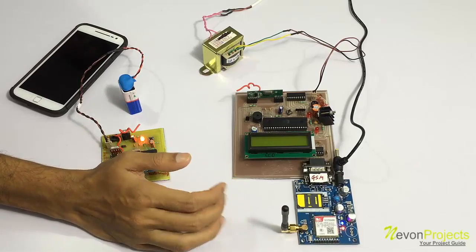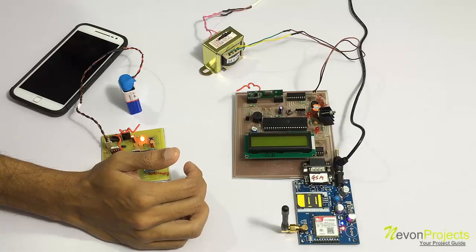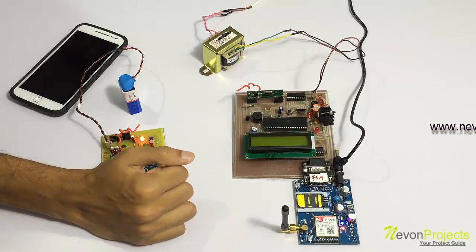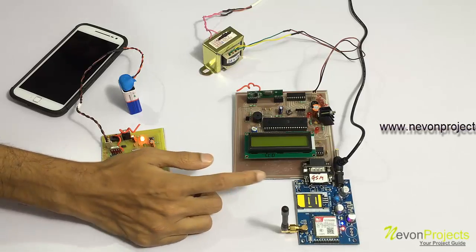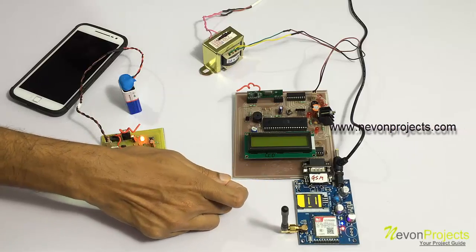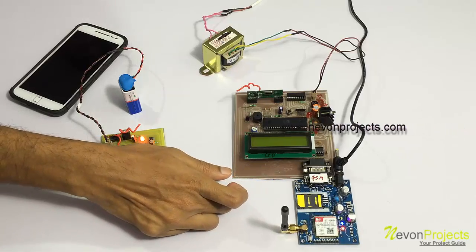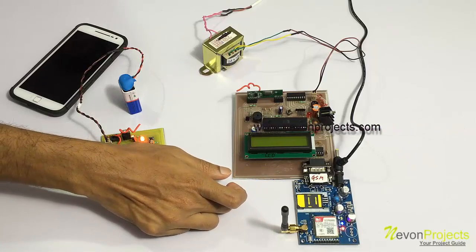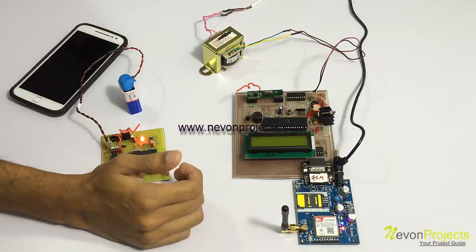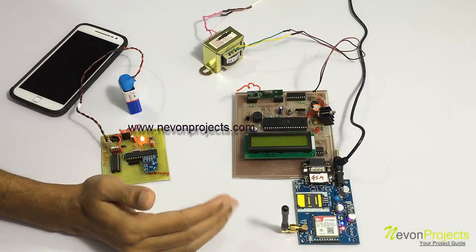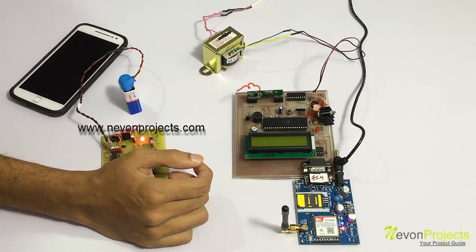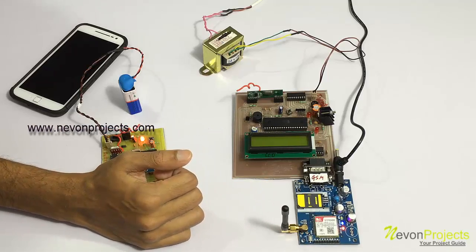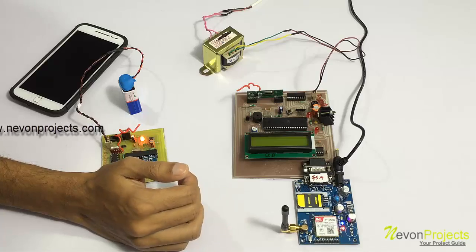If the paralysis patient is not attended for a particular period of time, he can keep his hand in a certain position so that the system will then use this GSM modem to send an SMS to the responsible person, the doctor, or the admin or whoever is the higher authority, so that he or she can take care of the issue and the patient is not left unattended in any condition.